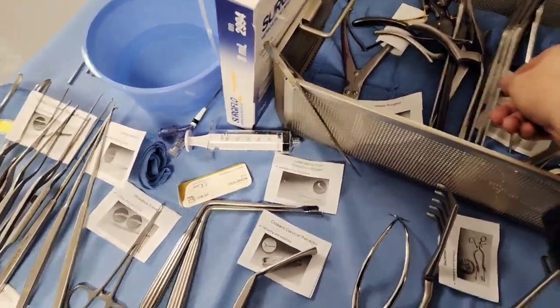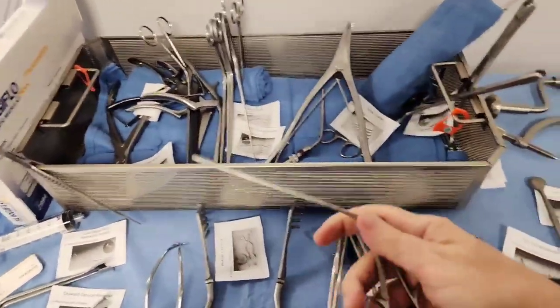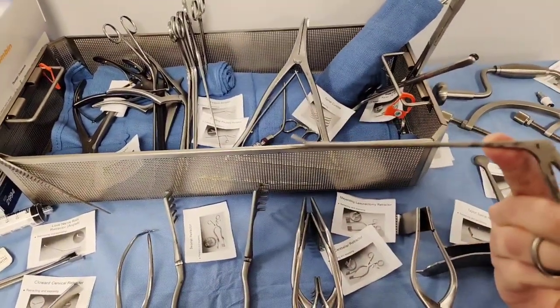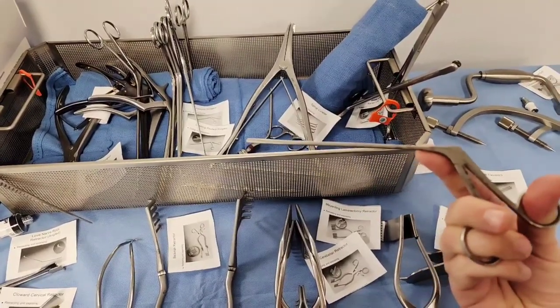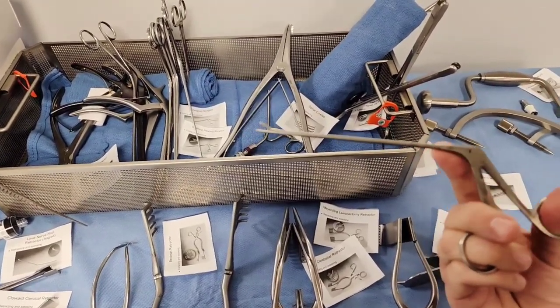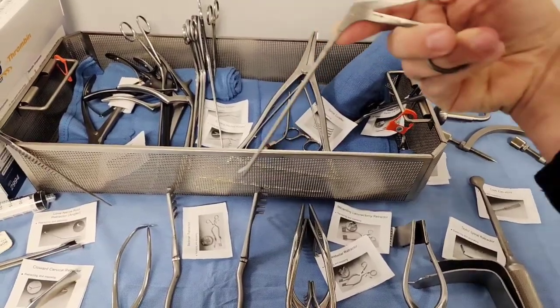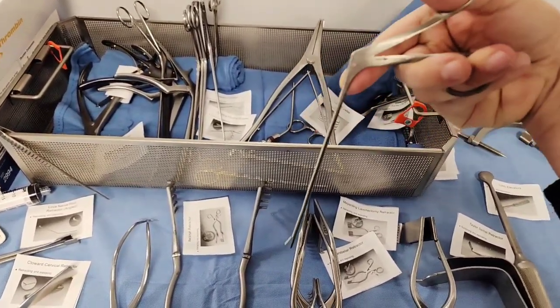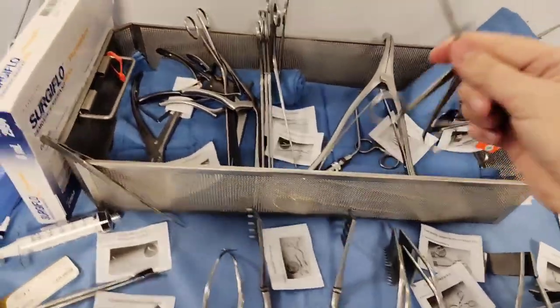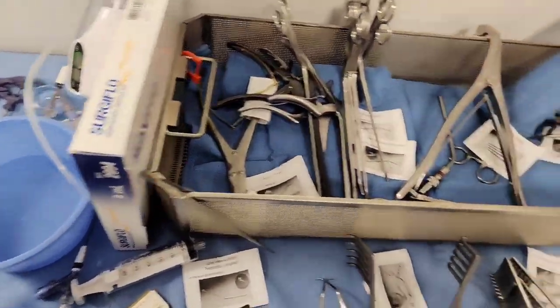There's something called a peapod — it really is, it's the peapod — the smallest of the pituitary rongeurs. Again, straight biting, back biting, forward biting, based on whatever anatomy you're looking at and trying to reach. The peapod rongeur is the smallest of the actual pituitary rongeurs.